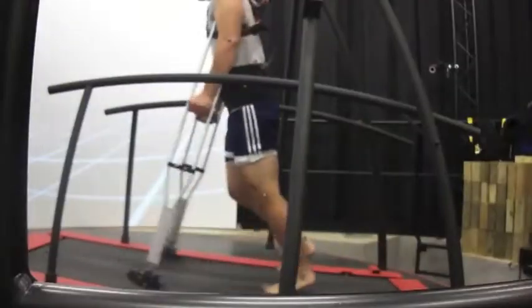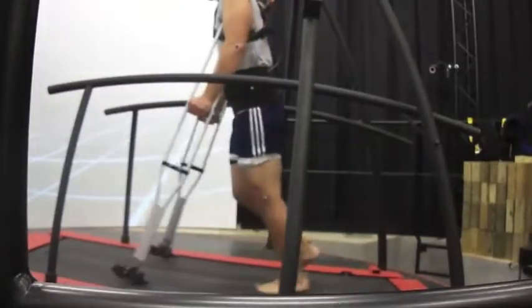We also measured the crutch gait on an instrumented treadmill that simulated uphill and downhill walking.